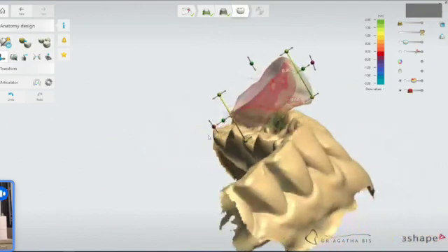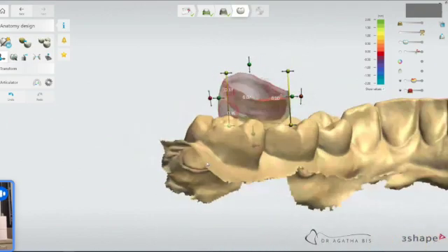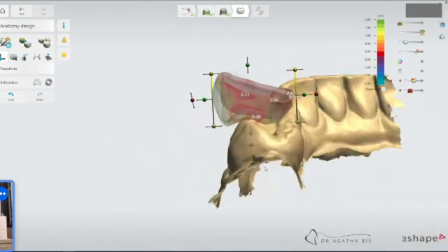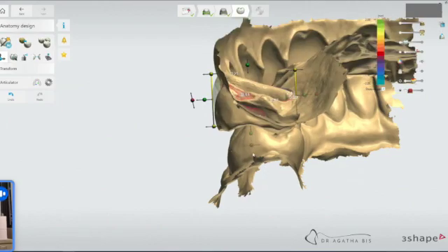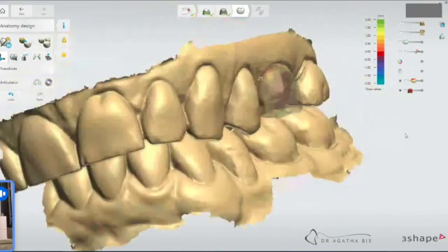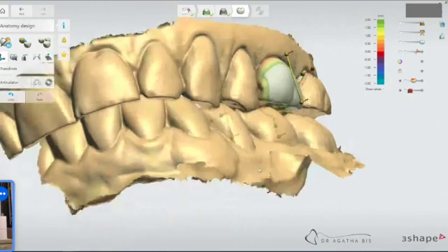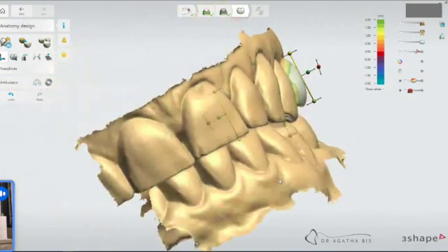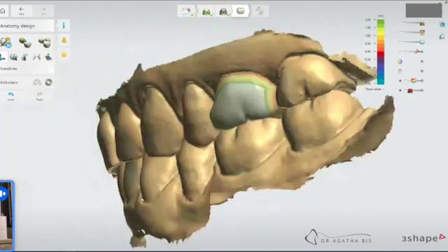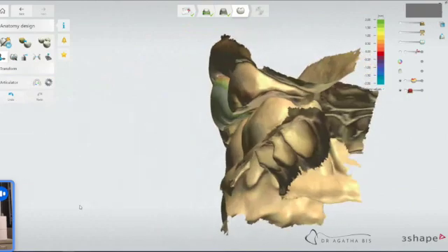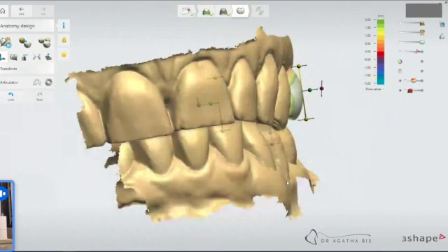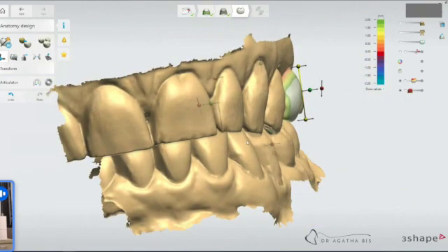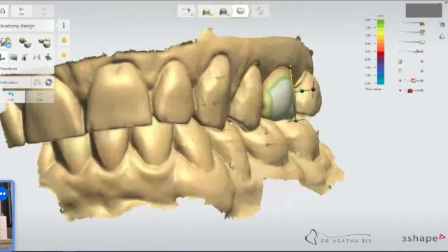And then the palatal cusp of the crown is sitting in the fossa where it should be. That's how I position these in three dimensions. Check it against other teeth. You still want it to look like it belongs. And now I find because of the angulation, because I did change the angulation a bit, it sticks out too much. So I'm going to just tuck it in a bit, bring it in a tiny bit.